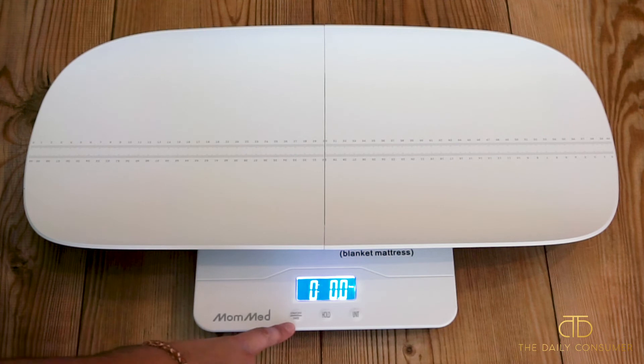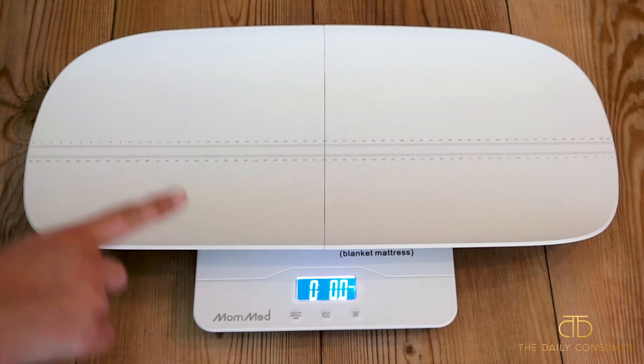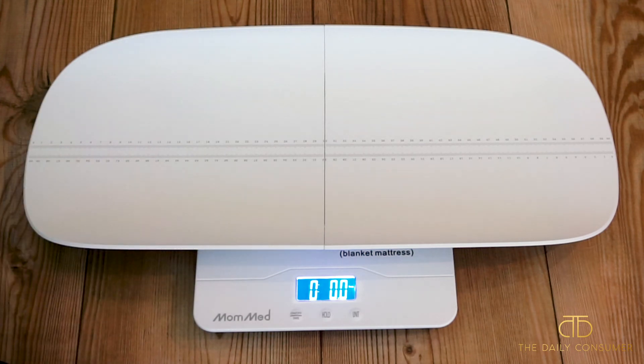On the on and off button, it also has a tare button. So if you had already turned on the bottom portion before connecting the baby piece, you would want to press the tare button to make sure that your value is at zero before you go ahead and weigh, to get an accurate measurement.